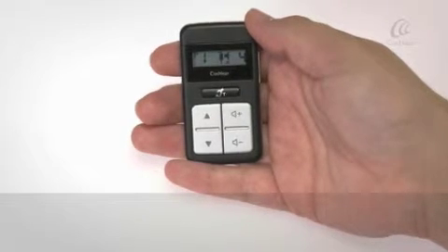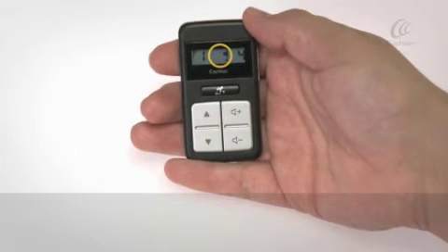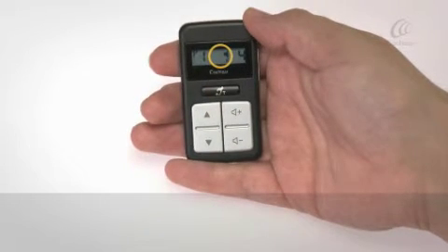To turn the audio accessory off, press the telecoil button once. The accessory icon will disappear.